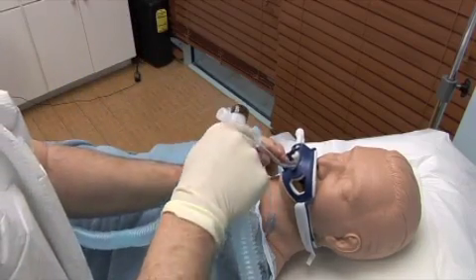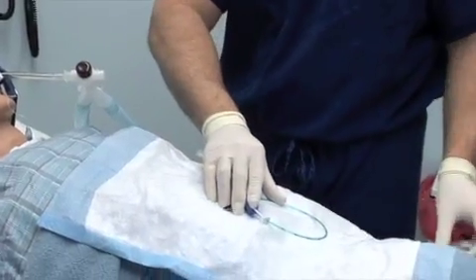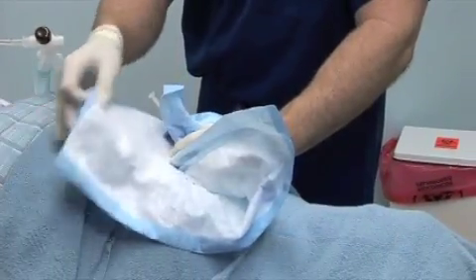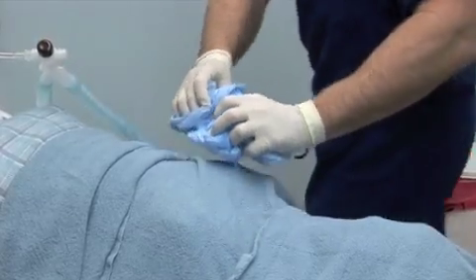If multiple passes are necessary, secretions may be rinsed from the catheter using sterile saline. Secretions should not be manually wiped from the catheter tip. Discard the used CAM Rescue Cath. Do not re-sterilize or store it for repeated use.